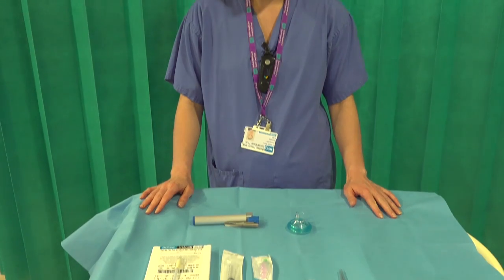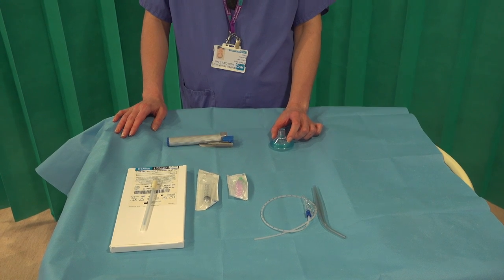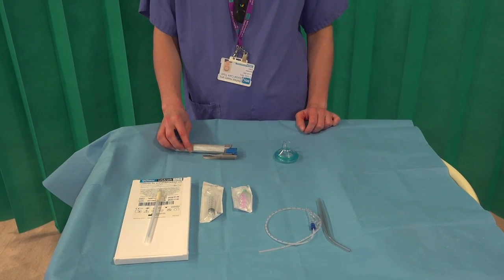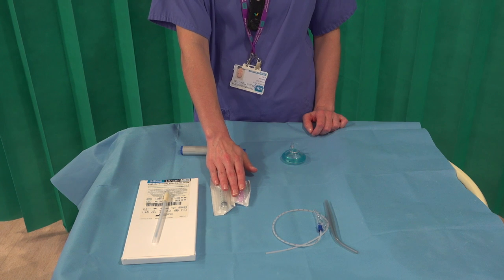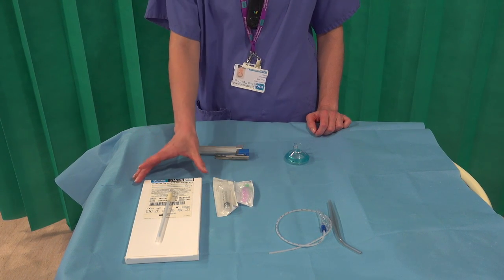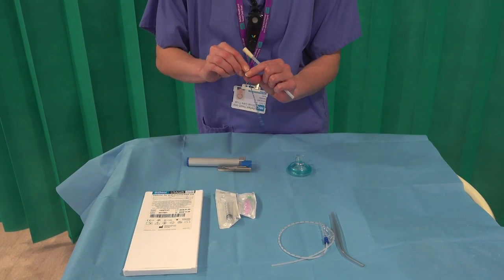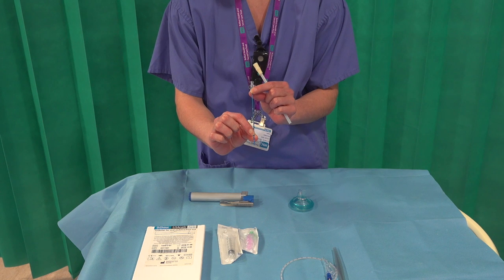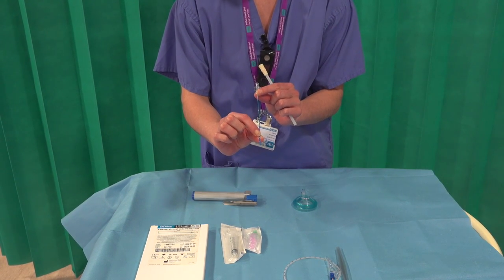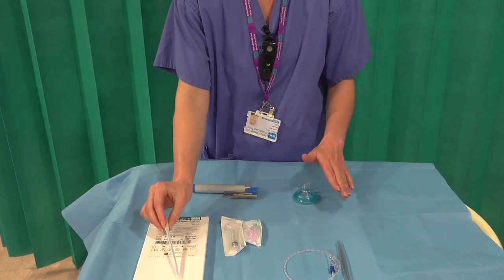Now I'm going to talk about our equipment. We need an appropriately sized mask for the baby to bag them up should this be needed, a laryngoscope so we can visualize the cords and where we're going to give the surfactant, and a needle and syringe to draw up the surfactant. We also have our LISA catheter, which you can see here, which has three lines at the bottom. We want to insert to at least two lines below the cords to ensure we're in an optimal position to give the surfactant, and suctioning should we need it to get optimal views.